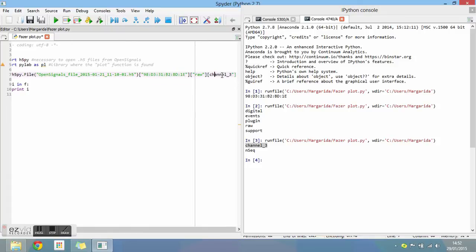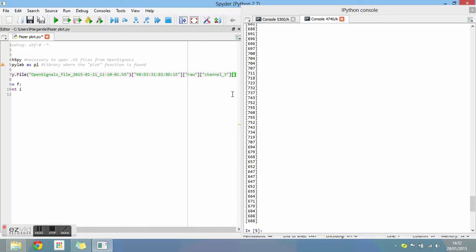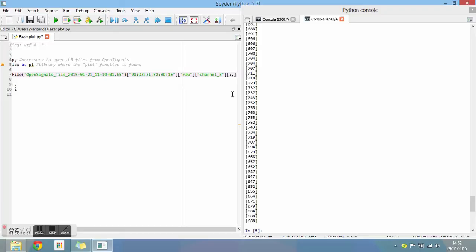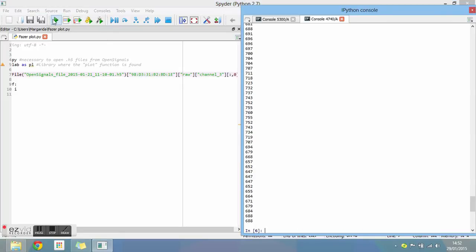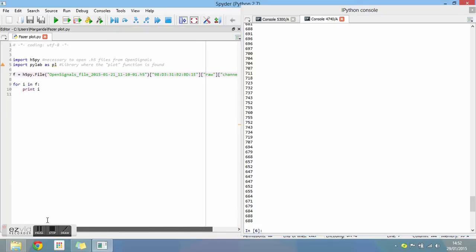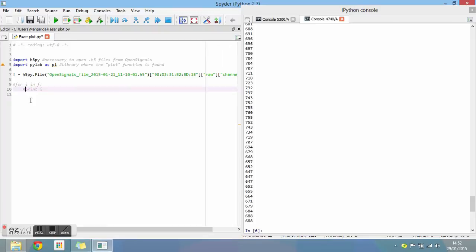Type the name of the channel as you see on the video. Then, add the last part like it appears on your screen. This step is only to format the information. You can now comment the auxiliary function as it serves no other purpose.